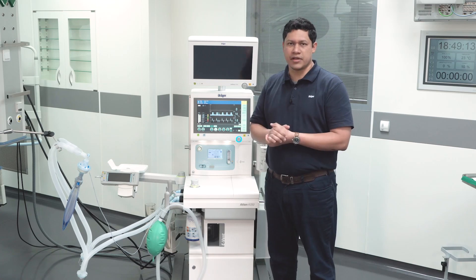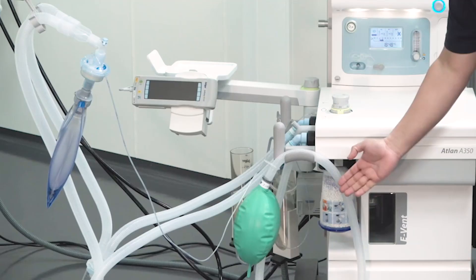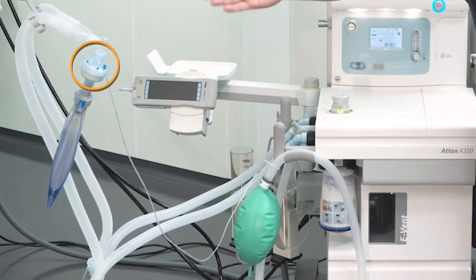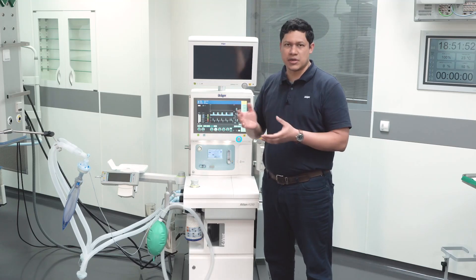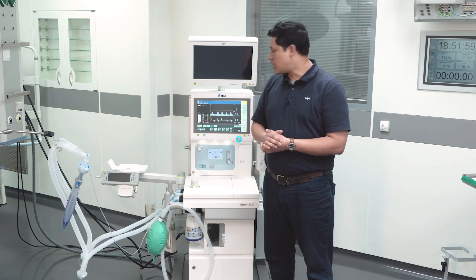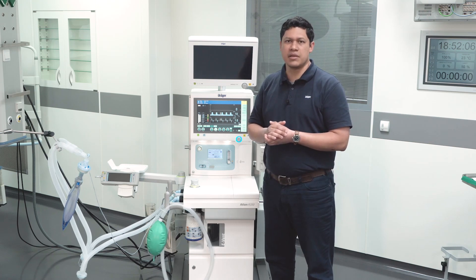When using the anesthesia device for long-term ventilation, check on the accessories frequently, at least every 12 hours: soda lime canister, gas measurement water trap, breathing hose system, and patient filter. To verify the condition of the soda lime, visually inspect it — make sure that no more than two-thirds of its content has changed color. Additionally, monitor the inspired CO2 and make sure its value is not higher than 5 mmHg.